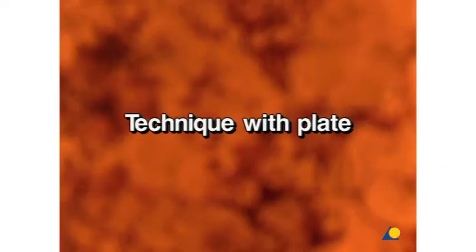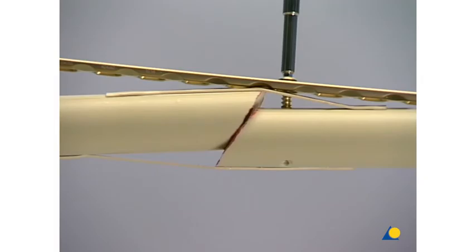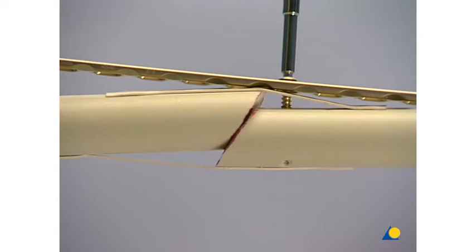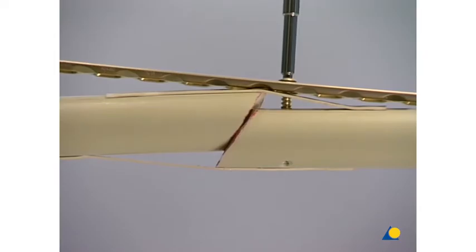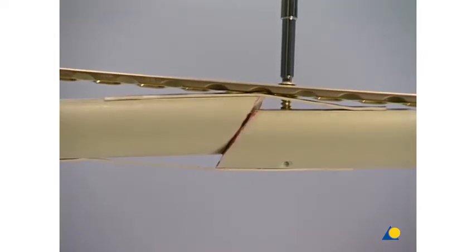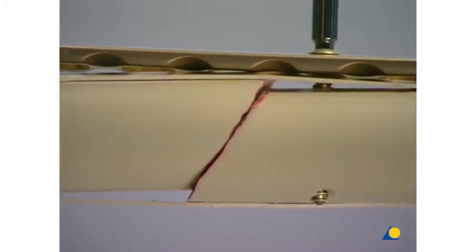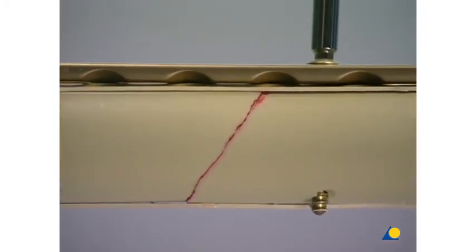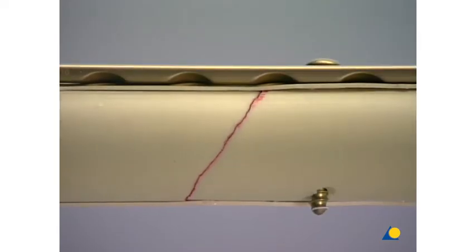Technique with plate. With a screw, the plate is loosely fixed to the main fragment, which forms an obtuse angle with the plate. The other main fragment is reduced approximately by traction. By tightening the screw, the correct reduction of the fragments is achieved. This technique, described by Weber, is now widely used, especially for the reduction and fixation of the fibula in the presence of a type B malleolar fracture.